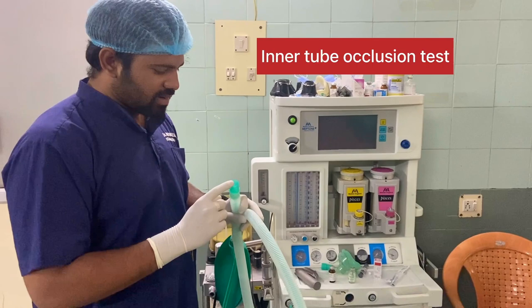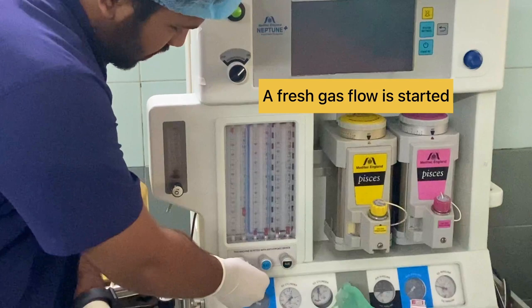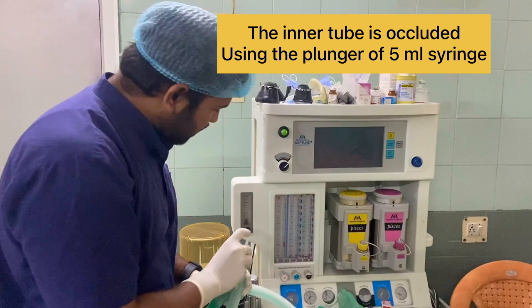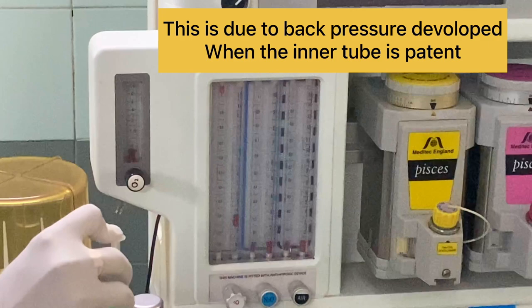For the inner tube occlusion test (bobbin dip test), start the fresh gas flow at 2–4 liters. Take the plunger of a 5 ml syringe and insert it into the outer tube to occlude the inner tube. Watch the flow meter bobbin closely — when you press the inner tube closed, you will see a dip in the bobbin level due to back pressure, confirming inner tube integrity.